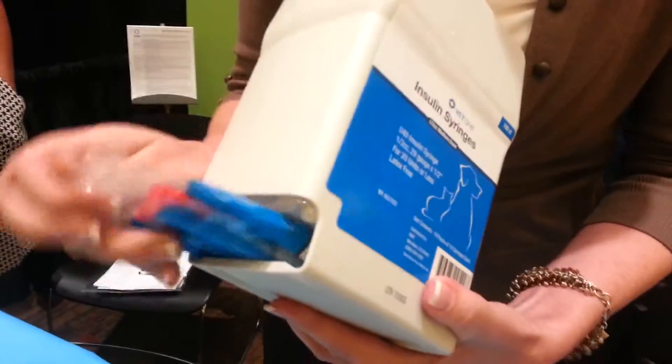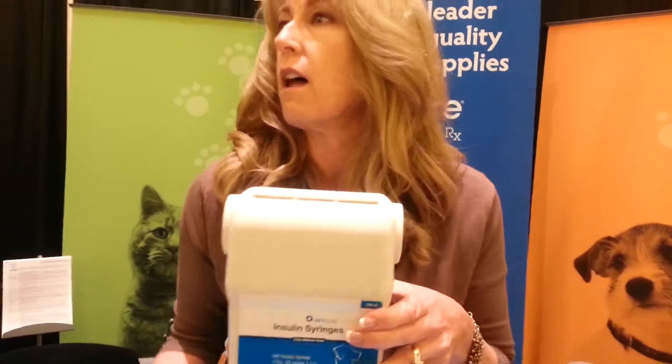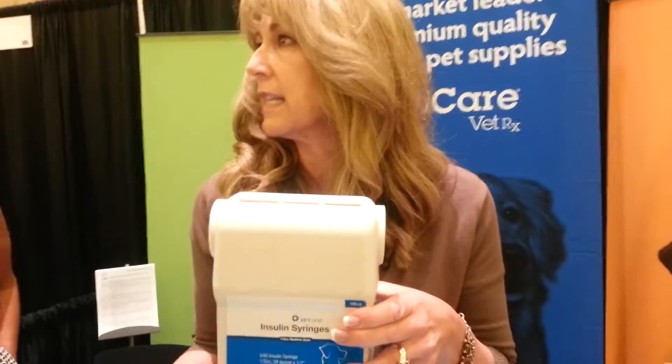The box works great for the clinic — they have their own sharps container. The UltiGuard goes home with the customers. Just pull it out of the bottom; I already have one taken out. Put it in the top. It serves as an all-in-one dispense and dispose sharps container.